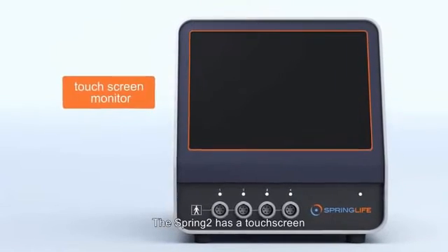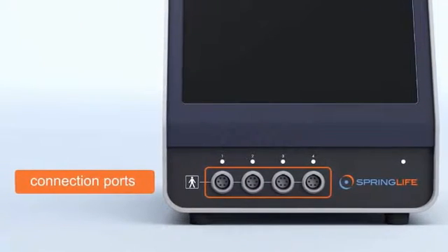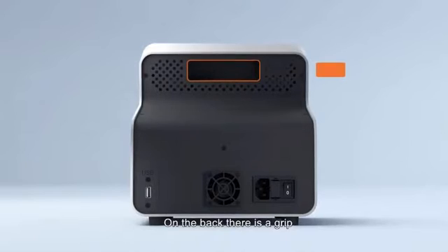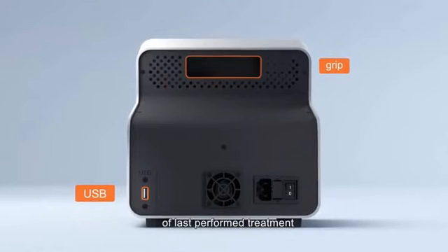The Spring 2 has a touch screen and four connection ports with indicator lights on the front. On the back there is a grip for easy handling and a USB port to extract the data of last performed treatment.